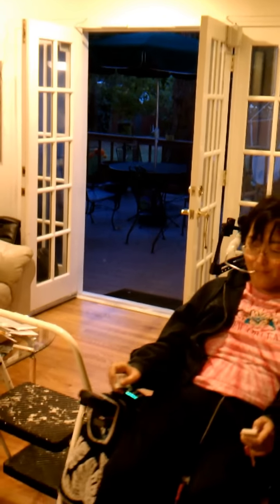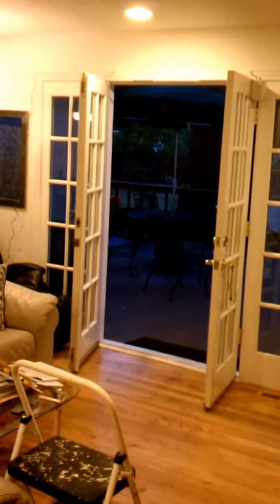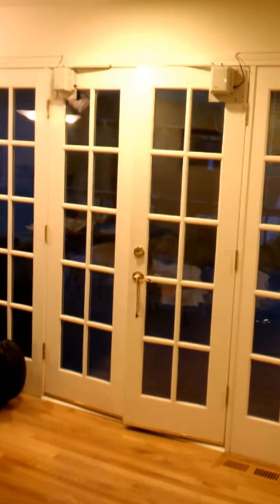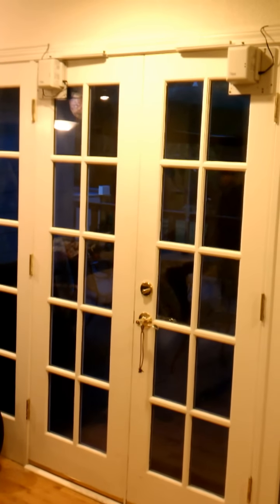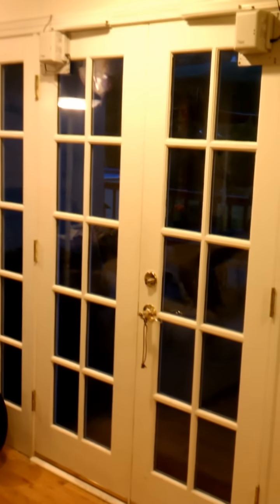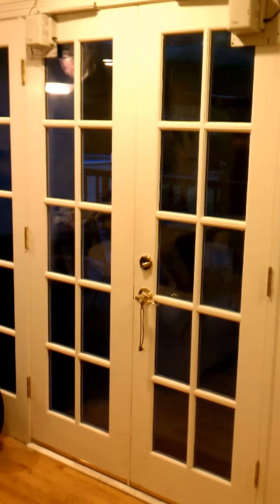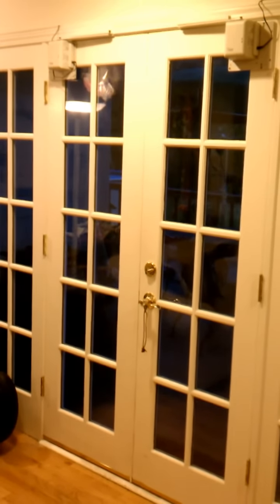The patient is able to open and close the doors using the wireless remote without having to reach up to open and close the doors themselves. The whole setup was installed in about 30 minutes for each motor using simple tools. No other modifications are required to the door other than installing a plate to disable the latch. The units run off of normal standard household AC power.